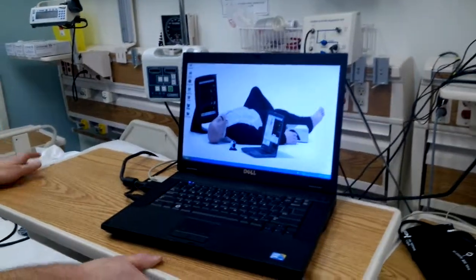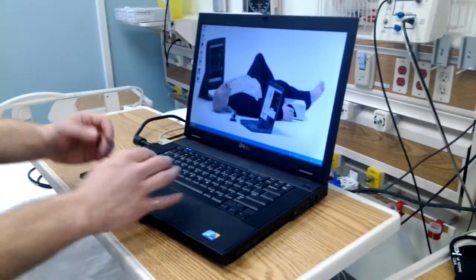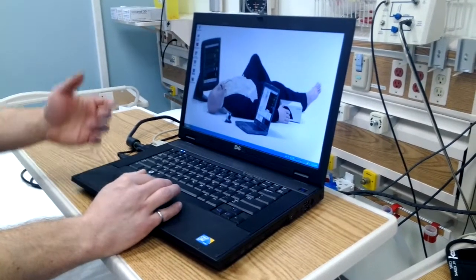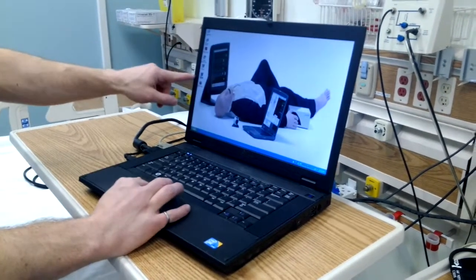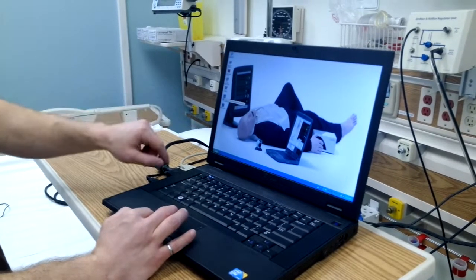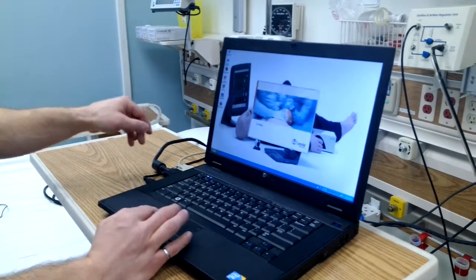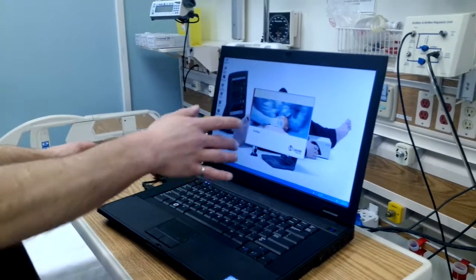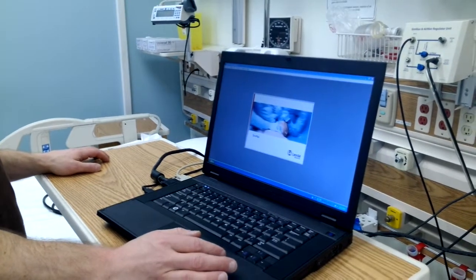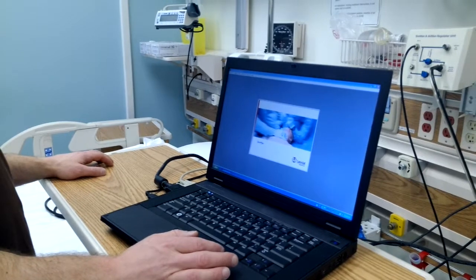That brings us to the laptop. Normally, this laptop is in the control room. It's at the bedside for convenience for this demonstration. So we've turned it on. What we want to start up is this Laerdal SimMan program. There are other options here, including SimBaby, but we're going with SimMan. So we double click. And it starts. It will take a few seconds to load the program.